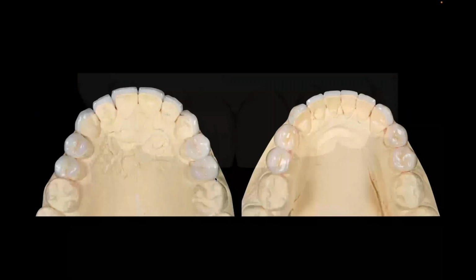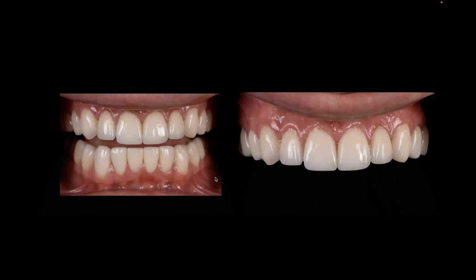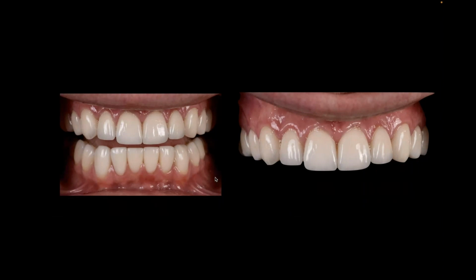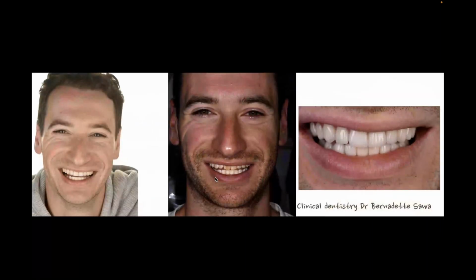to have these placed. And in the end, the case was a fairly nice case, but this is a nice example of utilizing some of the lithium disilicate materials and some of the monolithic materials that we can use in combination. So I want the aesthetics in the anterior, but I'm okay with some of the colorations in the posteriors. And that case worked out fairly nicely. A perfect example of the lithium disilicate, both micro-layered, layered, and monolithic.